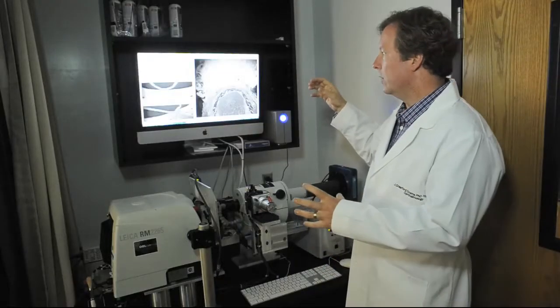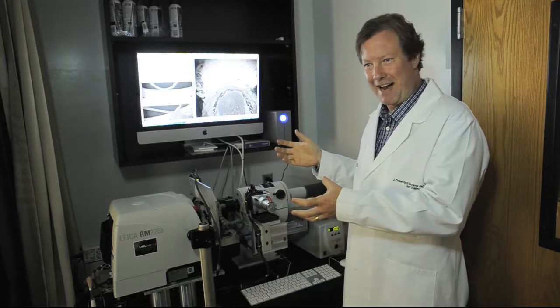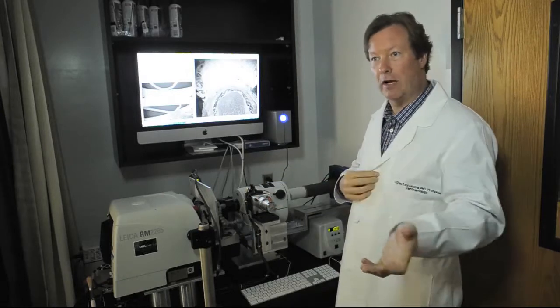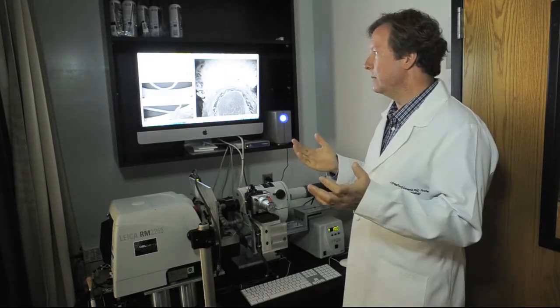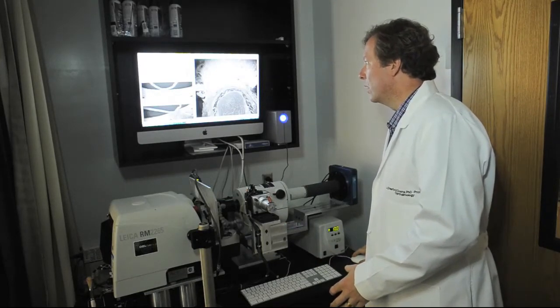So what we have here is a device that's fully automated. It will text me a text message if it has an error. It will send me this image every 100 slices to my email, so I can track it and know where it is. I can log into it, turn it on and off. So it's very fault tolerant and error resistant, and basically fully automated. So I'm going to start the system now, and you can see how it works.